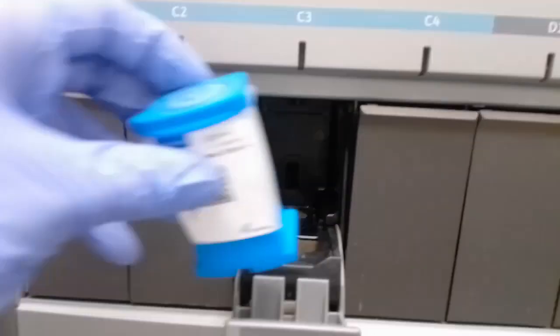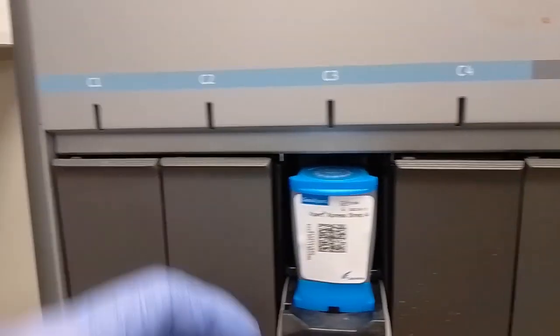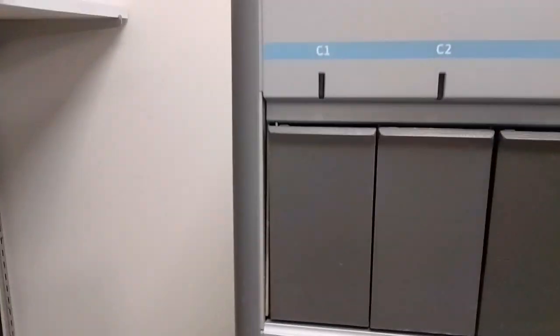And in regards to reporting, a negative result tends to cross over automatically, and it doesn't require a manual release or anything. And if you get a positive result, then you just have to cross that over manually, which means you'll just press accept pretty much, but it doesn't require a call to the patient's nurse.